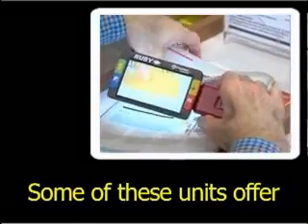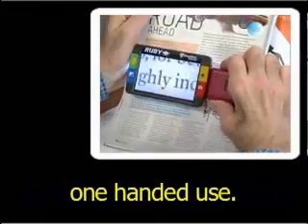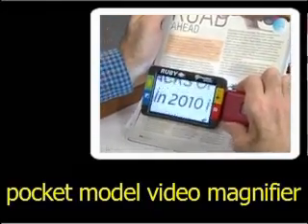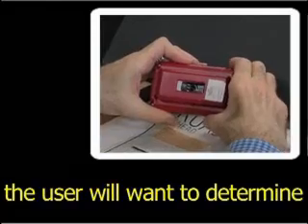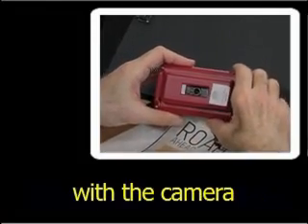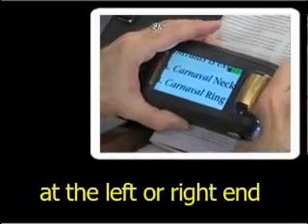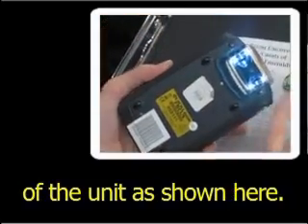Some of these units offer a fold-out handle for easier one-handed use. When selecting an electronic pocket model video magnifier, the user will want to determine if they prefer a device with the camera in the center of the unit or one that has the camera at the left or right end of the unit, as shown here.